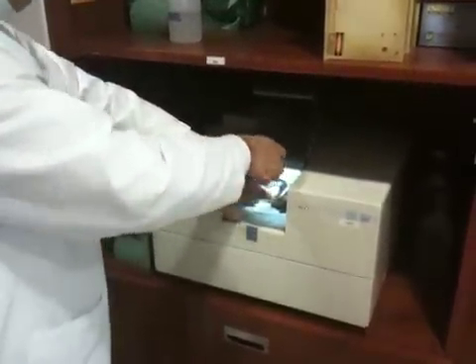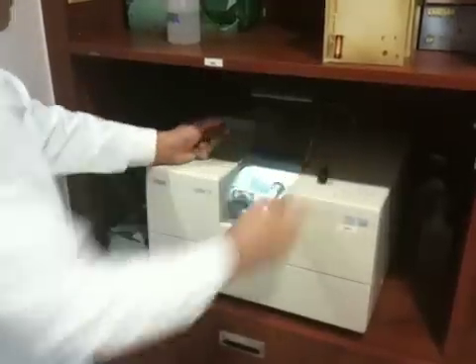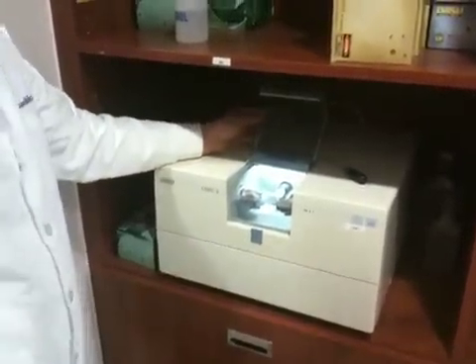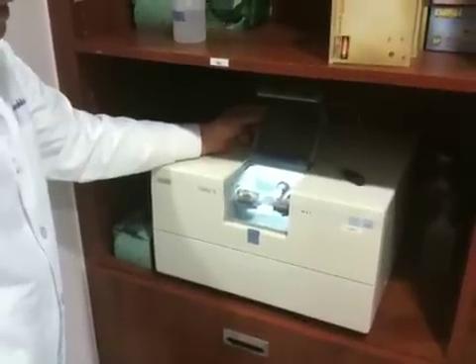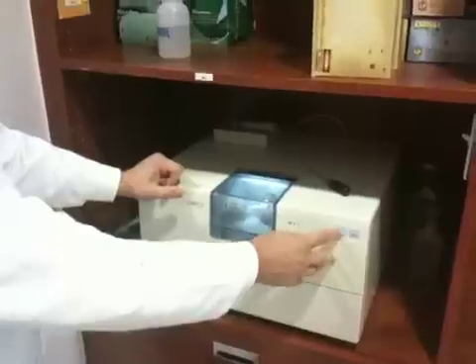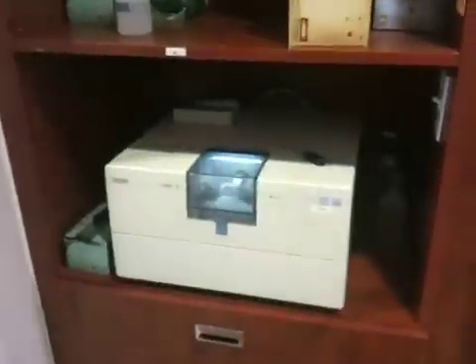We're going to hold it in position as we tighten it down with a little Allen wrench. We have two diamond-encrusted burrs here that are going to basically mill out this crown, and it's going to fit perfectly. So we're going to close the door here now, and in one second we'll hit start.